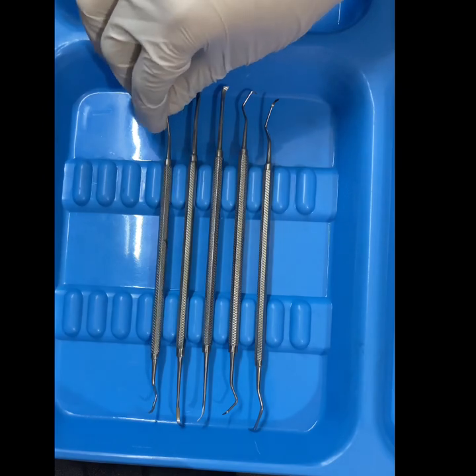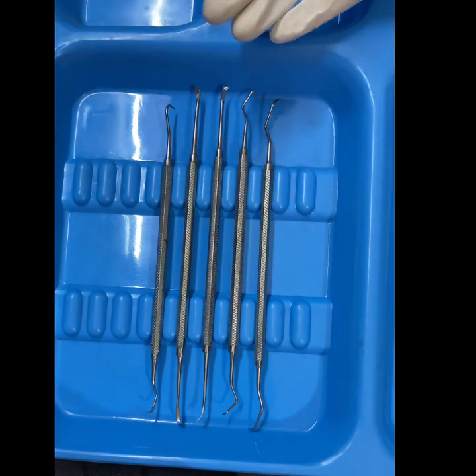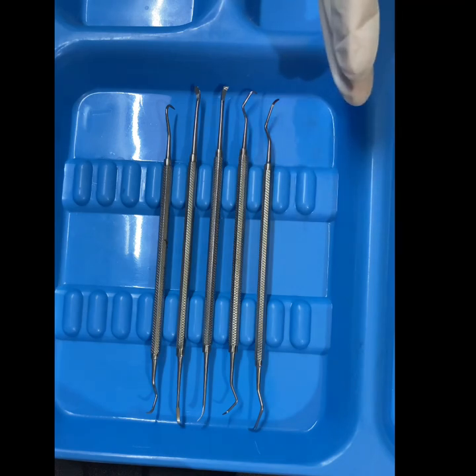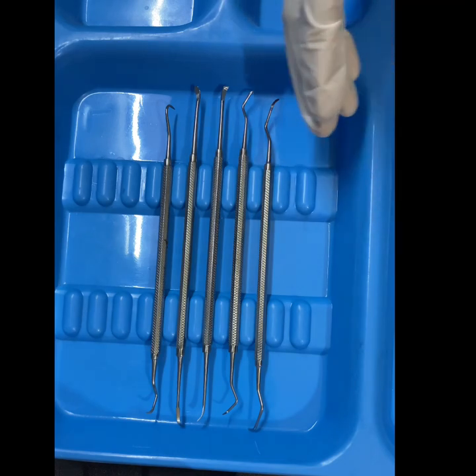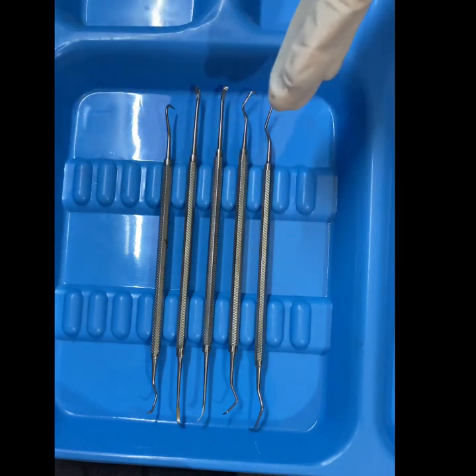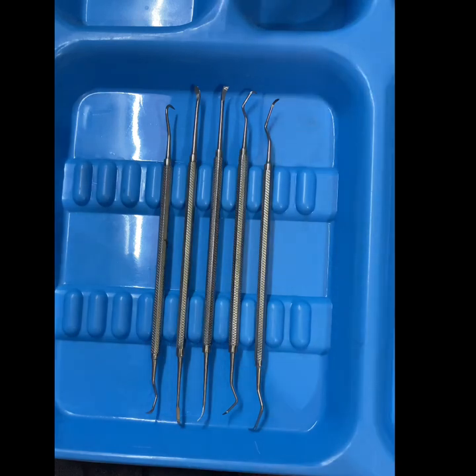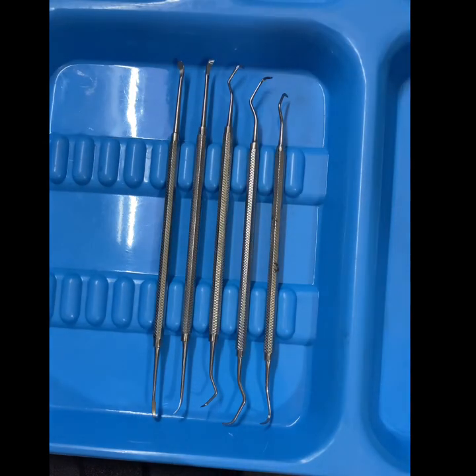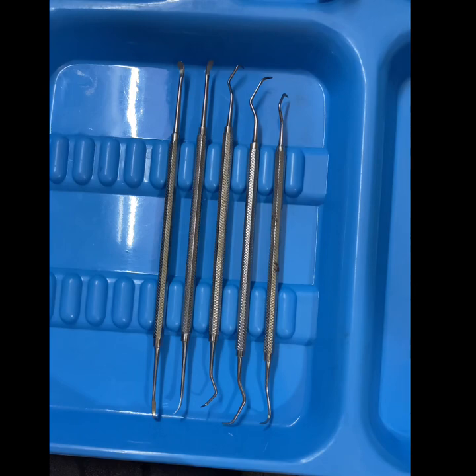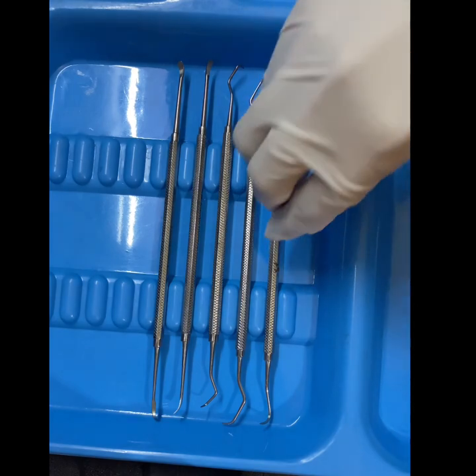There are two types of scaling instruments: the supragingival scalers and the subgingival scalers. The instruments we are going to look at now are the supragingival scalers.